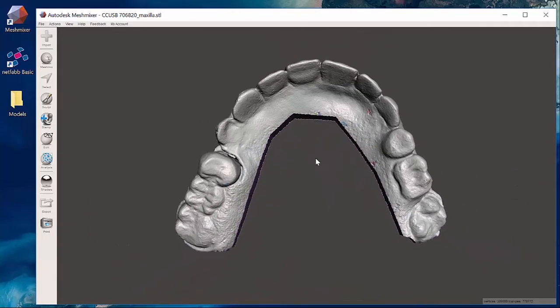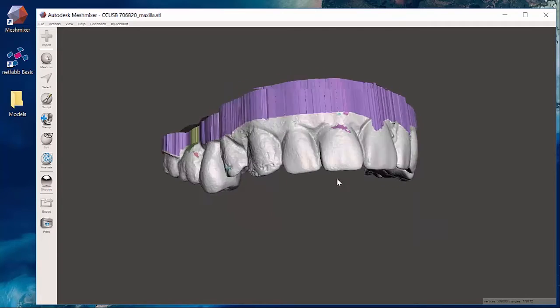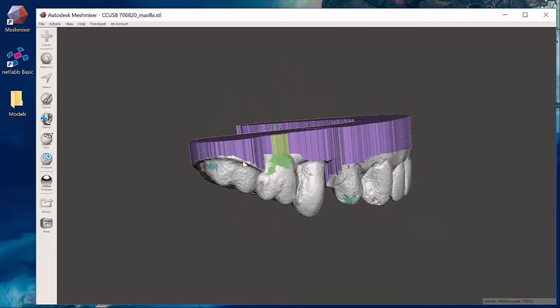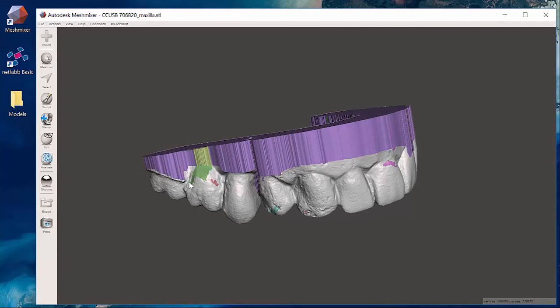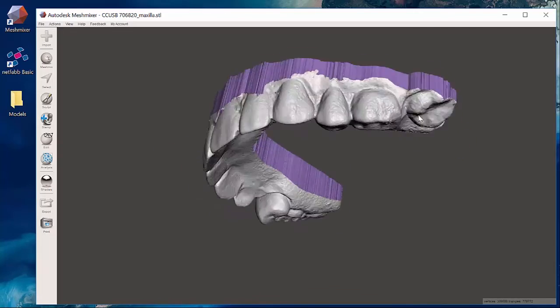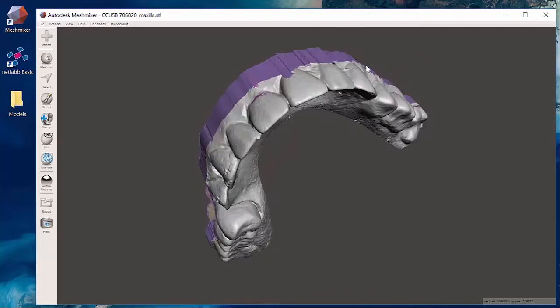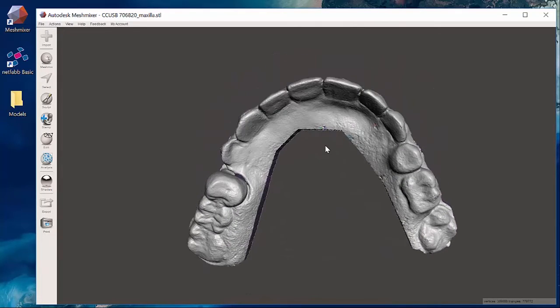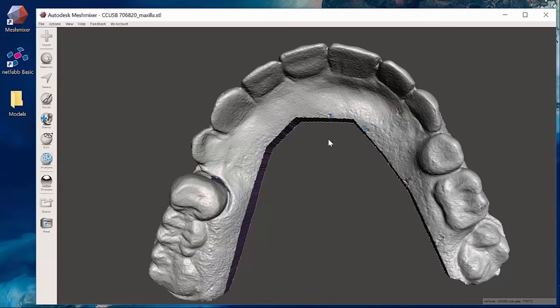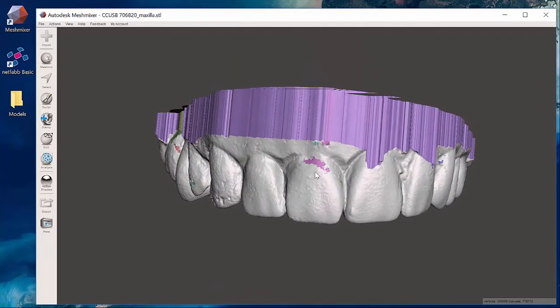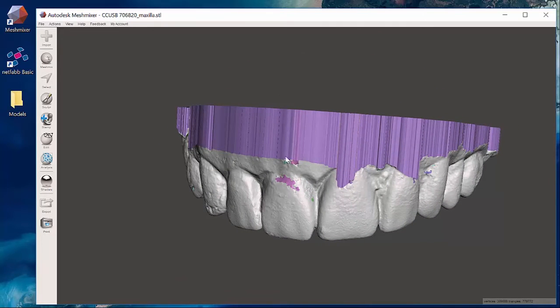And these types of cases are really tricky because sometimes it just takes a little bit of troubleshooting, finding the spot either of the partial removable partial denture clip here or this part of the tooth back here. Sometimes these models can be a little bit tricky going ahead and segmenting out, finding a little error spots, so that's why that NetFab software also comes in handy.